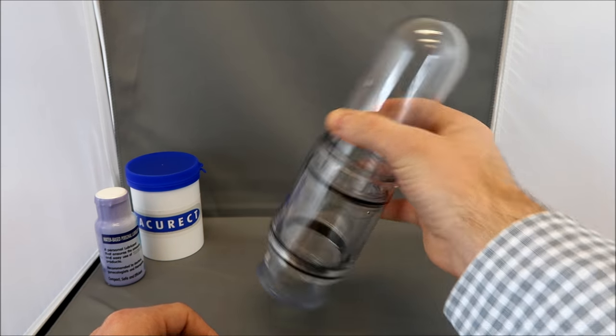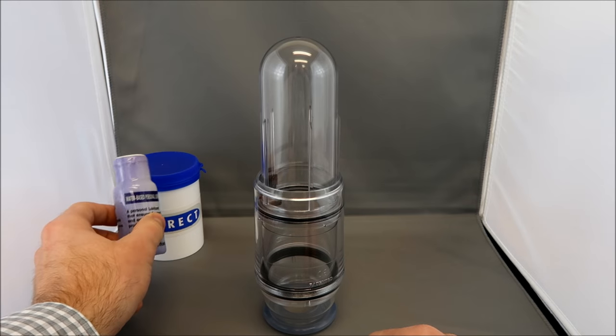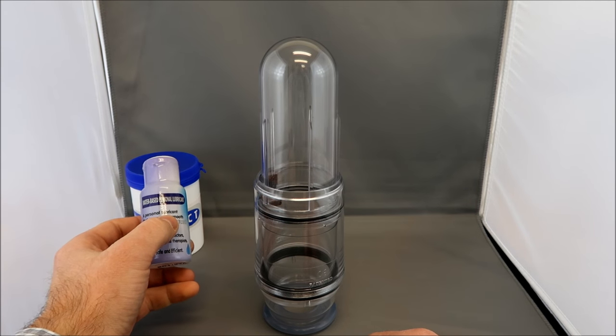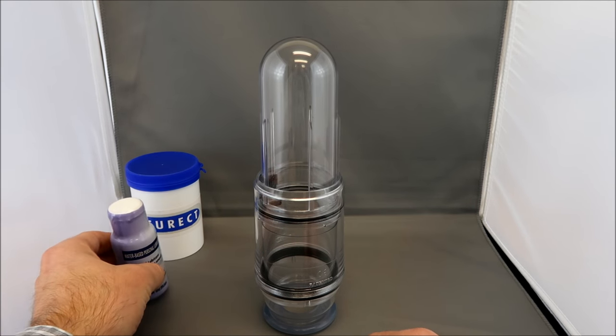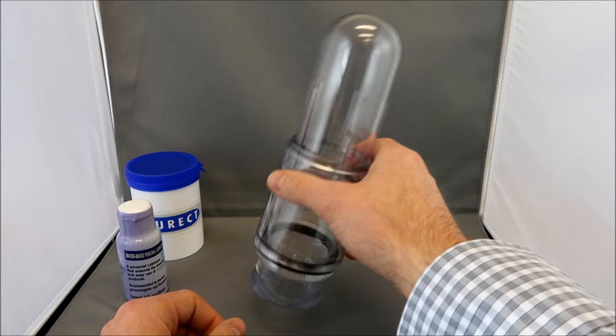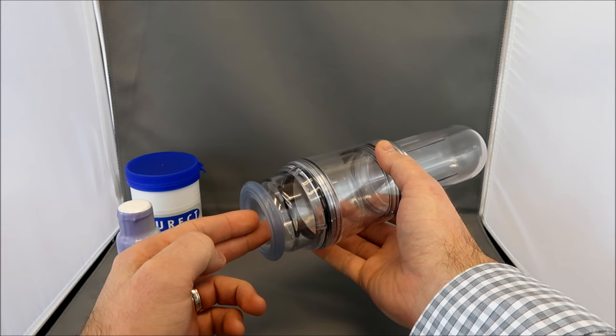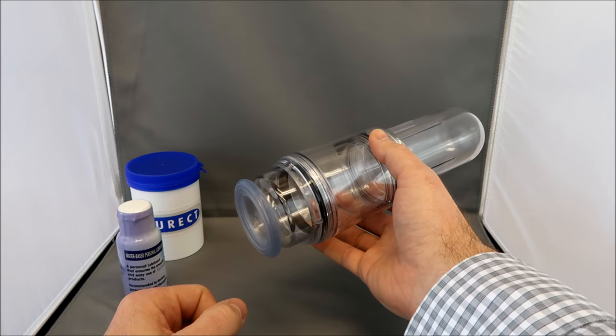You will then place a small amount of lubricant on the head and the shaft of the penis. Rest the head of the penis at the opening of the tension system.